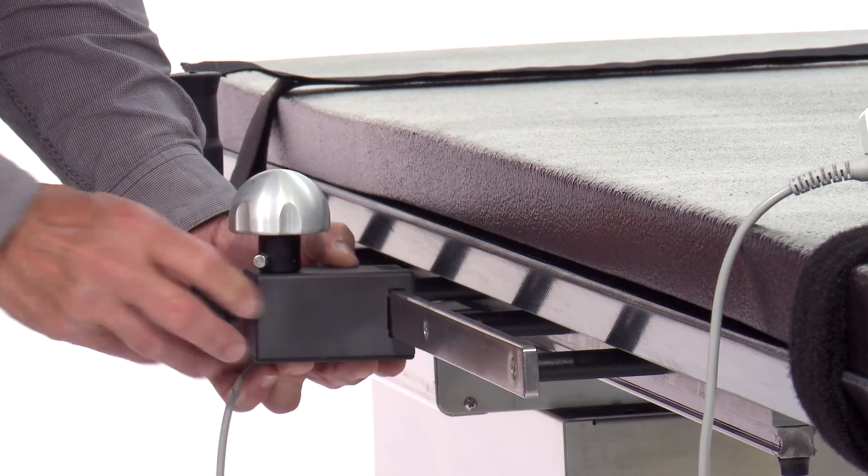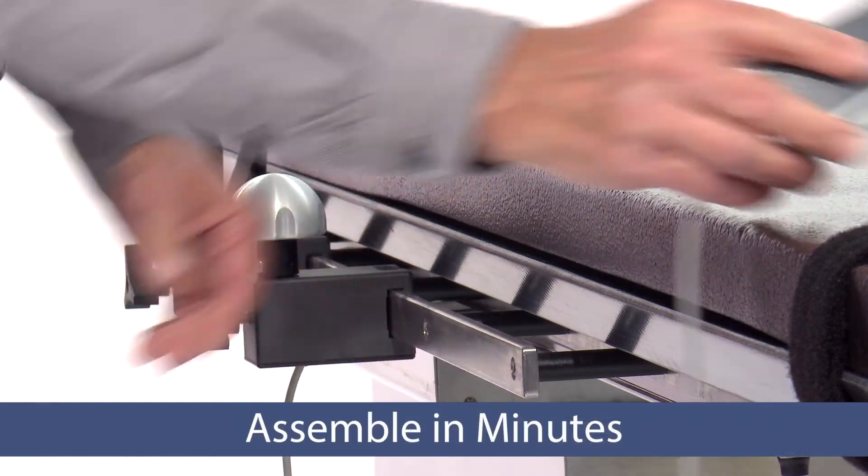Best of all, the easy, tool-free assembly will have you up and running in minutes.